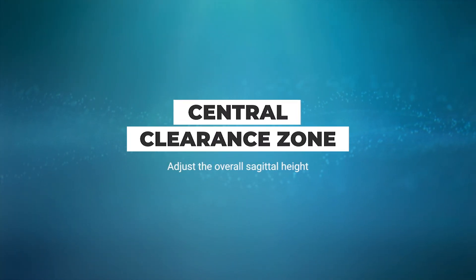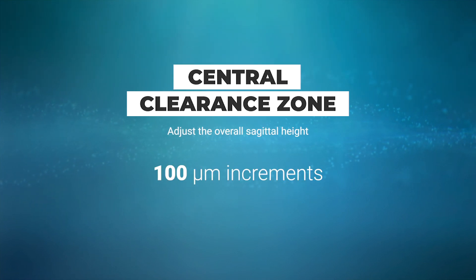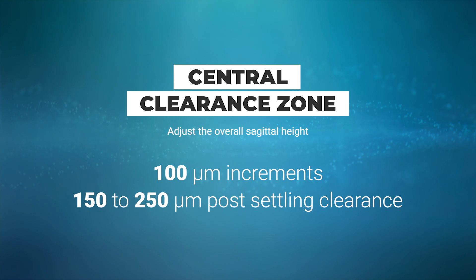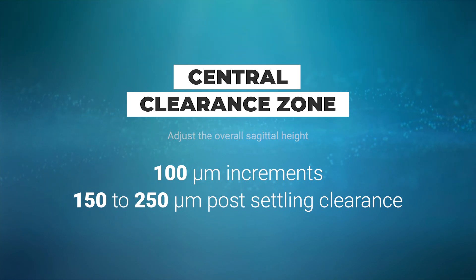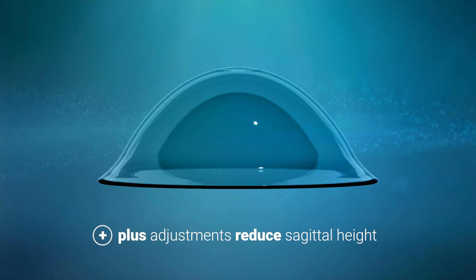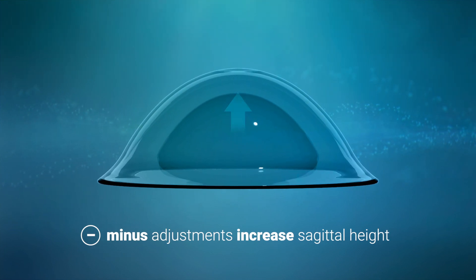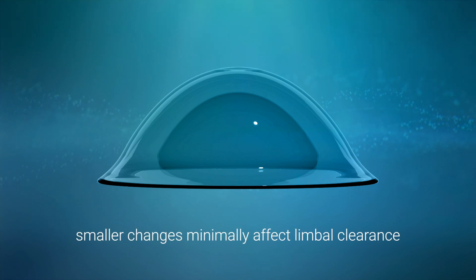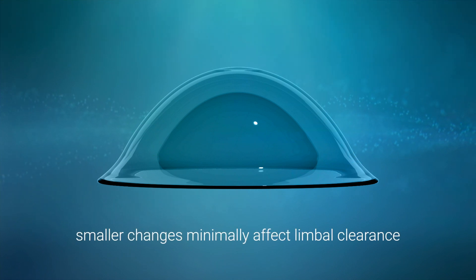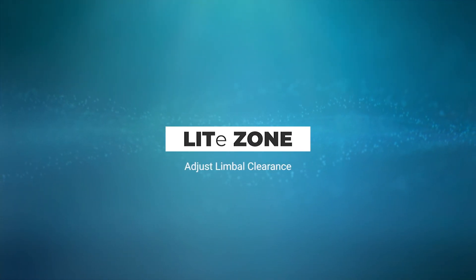Use the central clearance zone to adjust the overall sagittal height in 100 micron increments to achieve 150 to 250 microns of post-settling central clearance. Plus adjustments will reduce sagittal height while minus adjustments will increase sagittal height. These adjustments will change the curvature over the limbus, but smaller changes minimally affect limbal clearance.